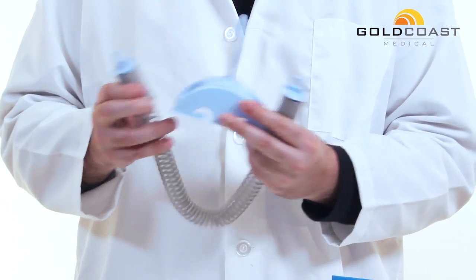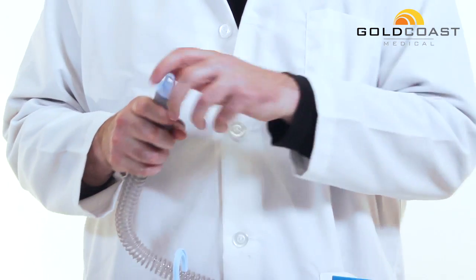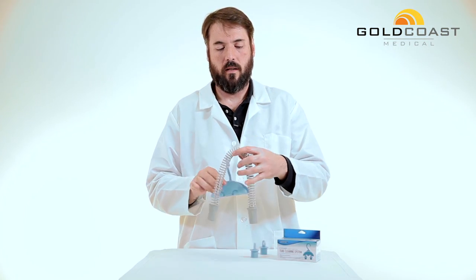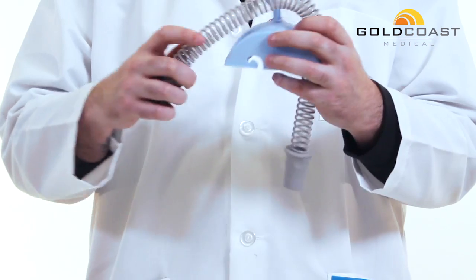When it's done, you simply remove the caps. And then this becomes a convenient place to dry your hose.